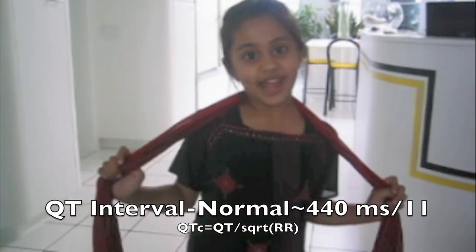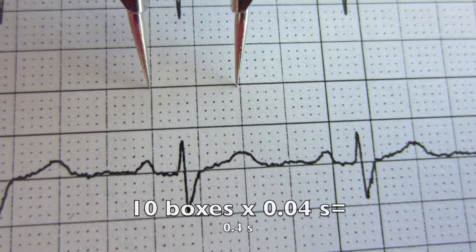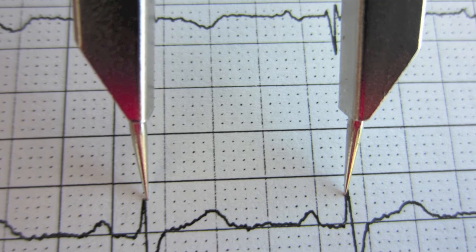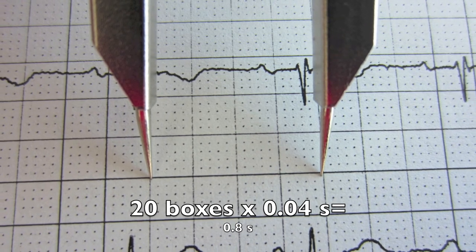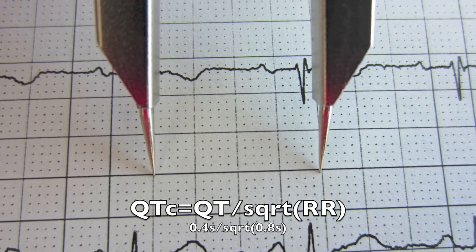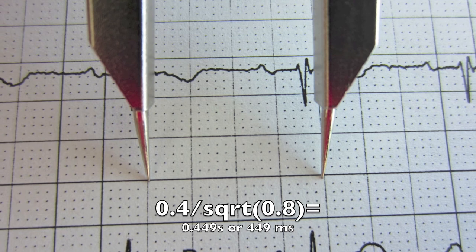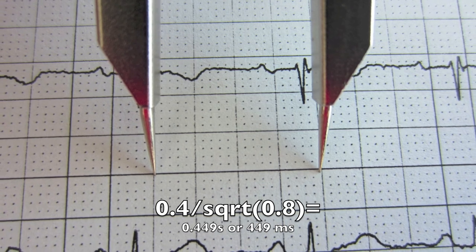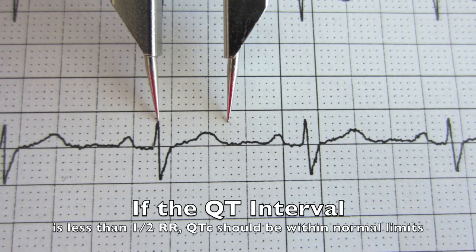To calculate the QT interval, measure from the beginning of the QRS complex to the end of the T wave — here that's about 10 boxes, or 0.4 seconds. Then look at the previous R-to-R interval, which is about 20 boxes, or 0.8 seconds. Plug those into the corrected QT formula: 0.4 divided by the square root of 0.8 equals 0.449 seconds, or 449 milliseconds. A quick tip: do your math in seconds, then convert to milliseconds. A shortcut is to make sure the QT interval is less than half the R-to-R interval.